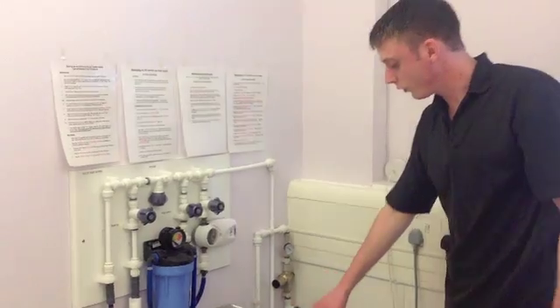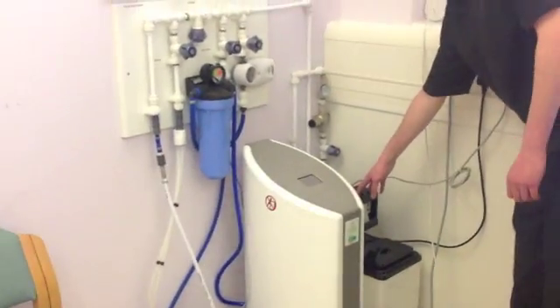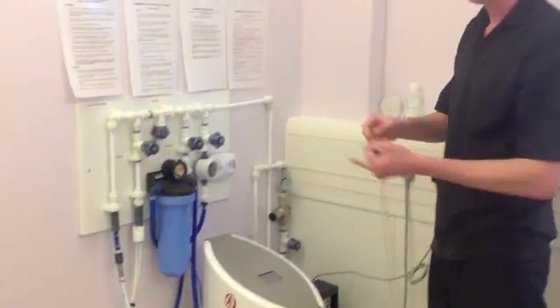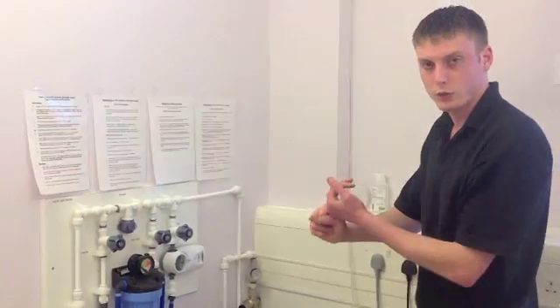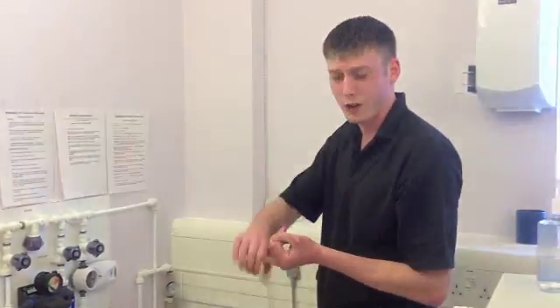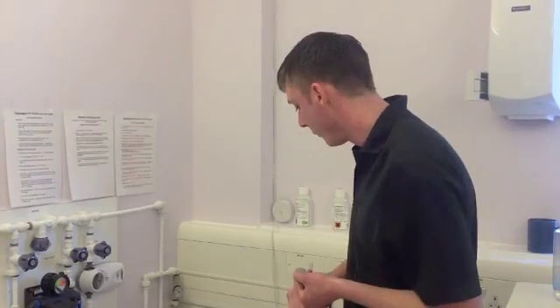The only thing I would say is that after you have done a regeneration of your softener, please make sure that you check that your water is soft afterwards. Because we don't want you doing your softener on a Saturday or Sunday, going to dialyse on a Monday, finding that your water is hard, and then ringing us up when you could have checked it the day before and we could have come out in time. Aside from that, good luck.